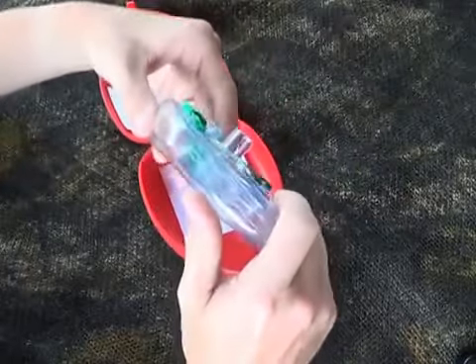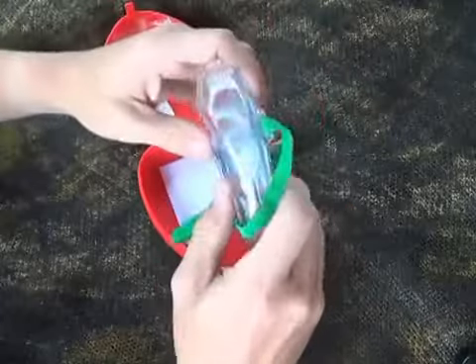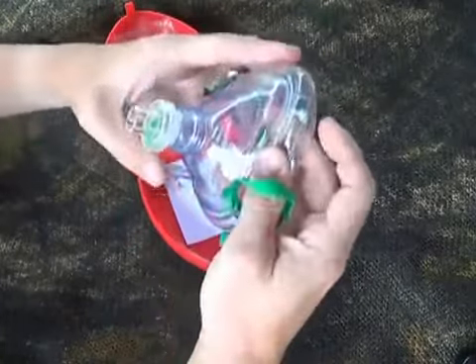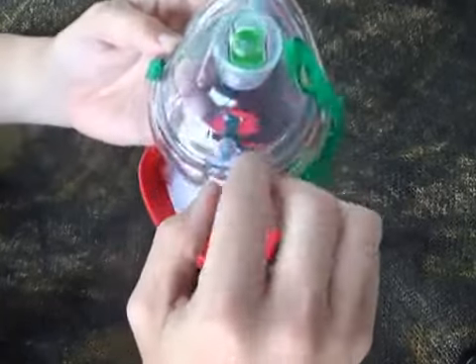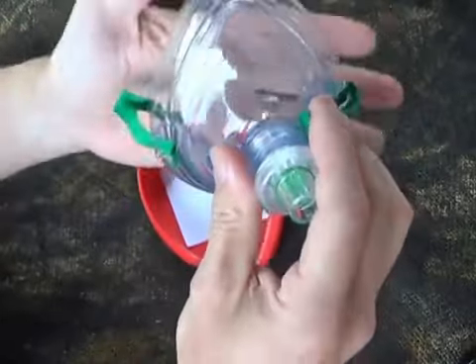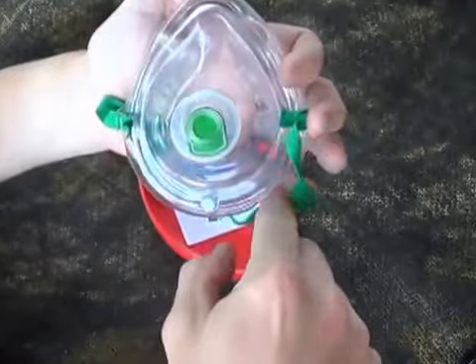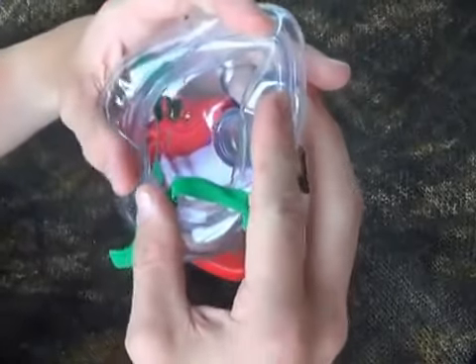You can see coming out of the case it's laying flat, so we have to form it. To do that, just take two fingers and push it up like that. It's got an arrow pointing to the nose end, so you lay it on your patient with that part going across the bridge of their nose and the other part going across their mouth, getting a good seal around their face.